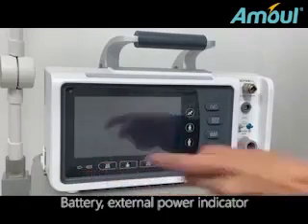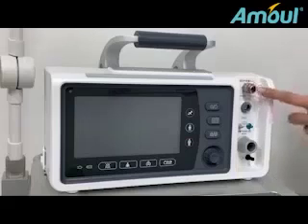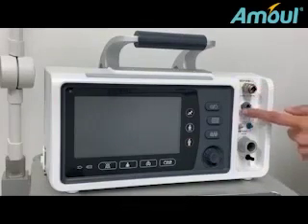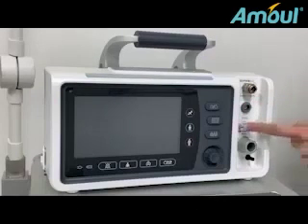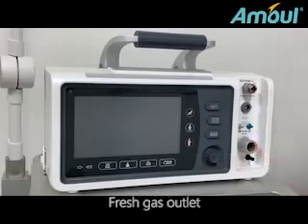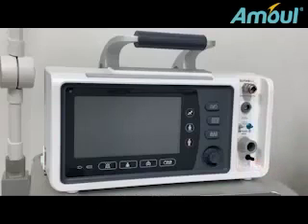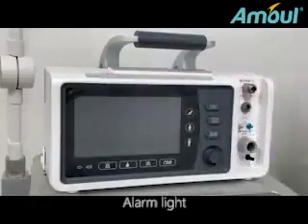Battery external power indicator. Air interface. ETCO2 sampling interface. Flow sensor interface. Fresh gas outlet. PEEP gas interface. Alarm light.